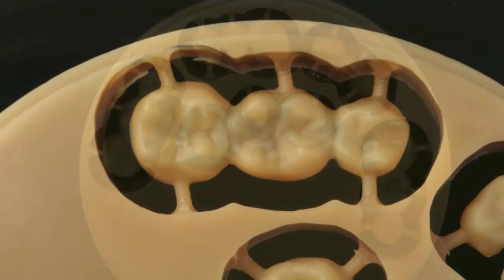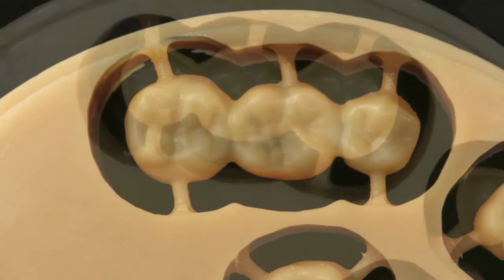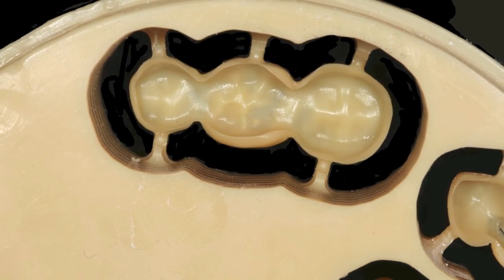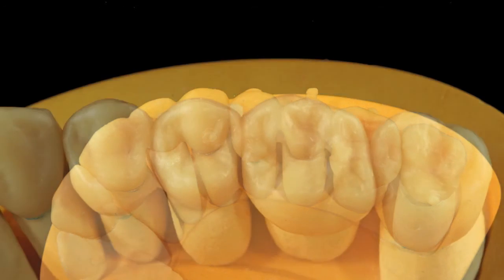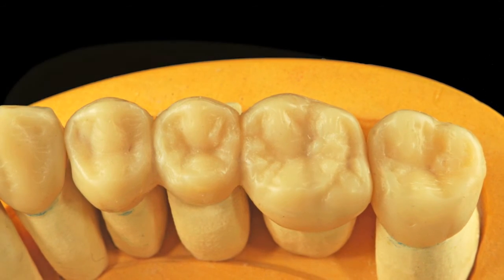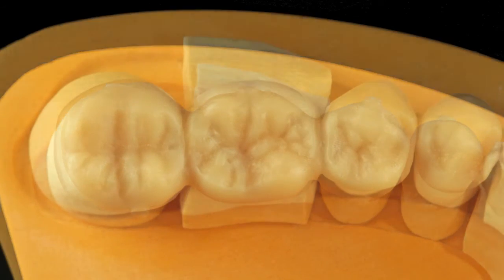The morphology is satisfactory, however a few adjustments may be made by checking the occlusion and guidance in the articulator. Internally the bridge demonstrates a clean and precise milling result. In this case the functional elements needed to be modified to achieve the desired results. There is a distinguishing advantage working with one's hands together with an articulator compared to computer-displayed scan data.